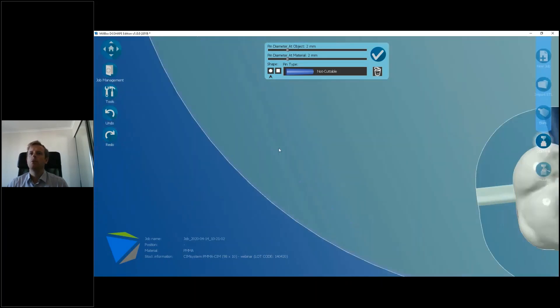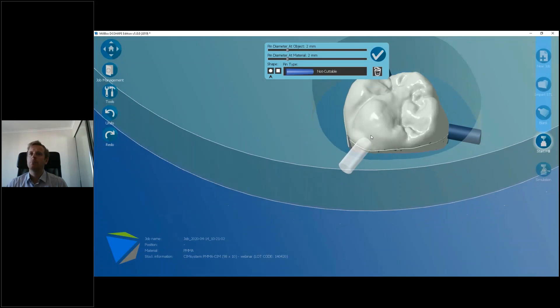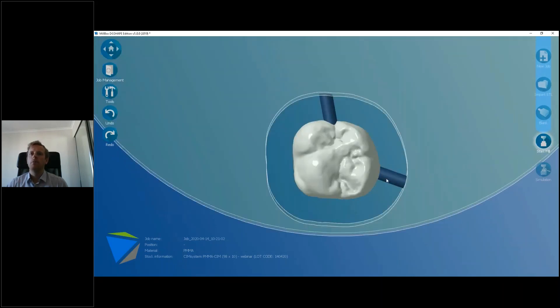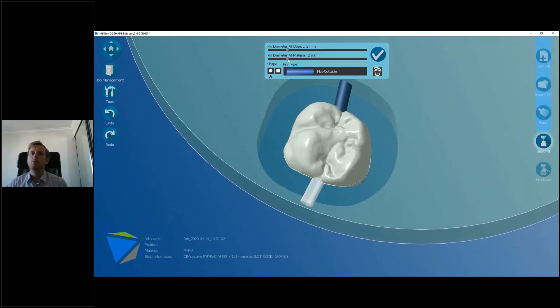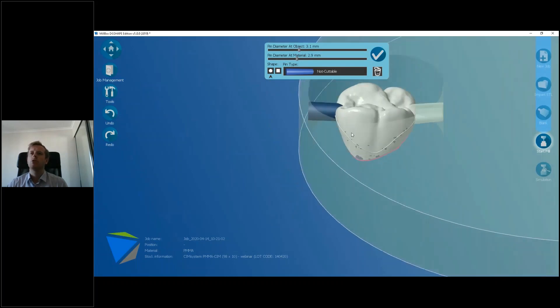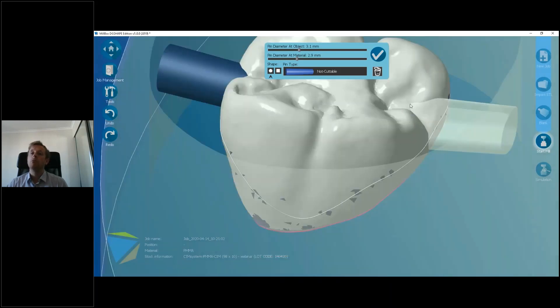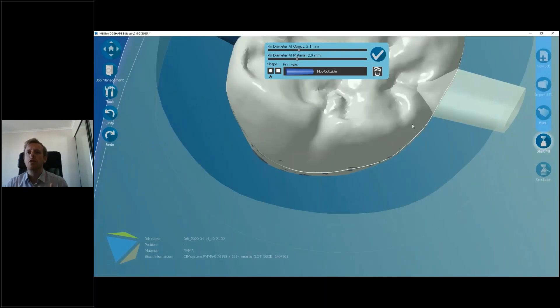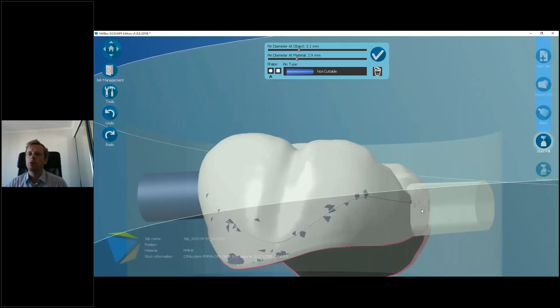When it comes to how many sprues, 120 degrees apart is quite good. Another way is to delete one and use two sprues 180 degrees apart, making them bigger — up to three millimeters using the sliders. Just be aware that if you make them too big they might start to overlap onto your anatomical occlusal surface, or if placed too low they'll interfere with the margin line.